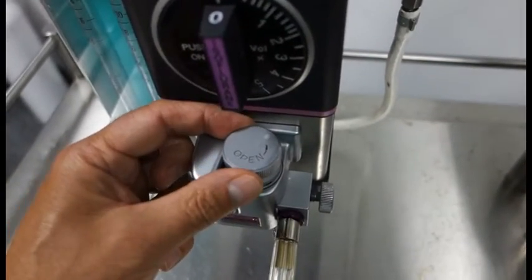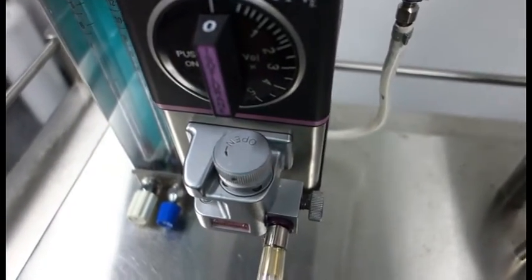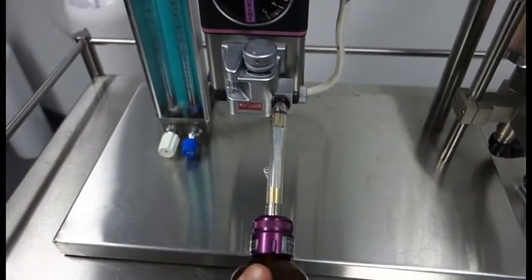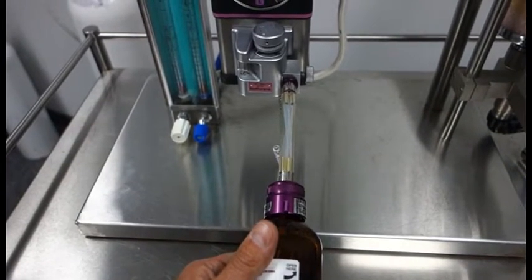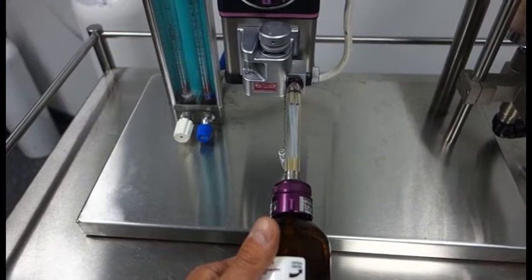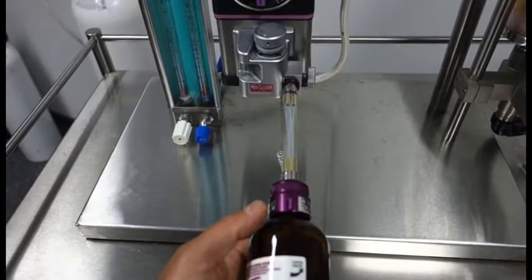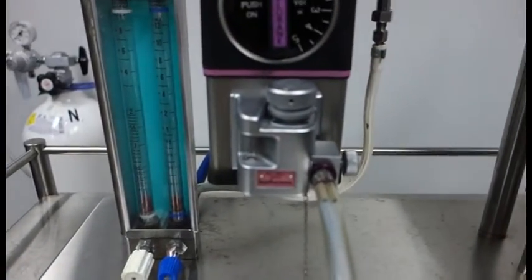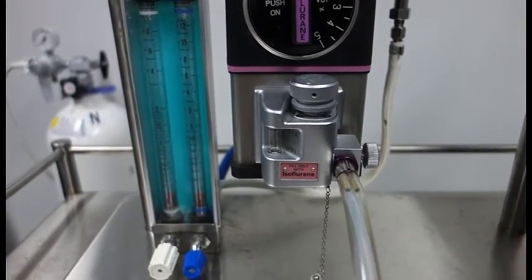We then open the valve here. Now when we lift up our bottle of liquid, that will actually start flowing into the anesthetic machine. In this case I'm not actually going to fill the anesthetic machine up, but we basically invert the bottle and we then see bubbles of anesthetic agent moving into the vaporiser. We check our level gauge on the side here to see when it's filled up to the maximum level.